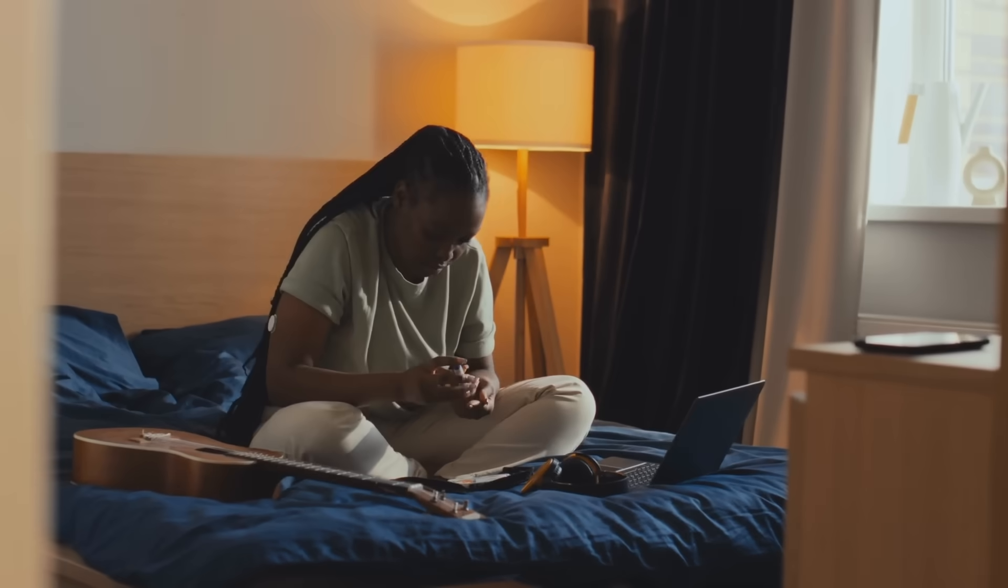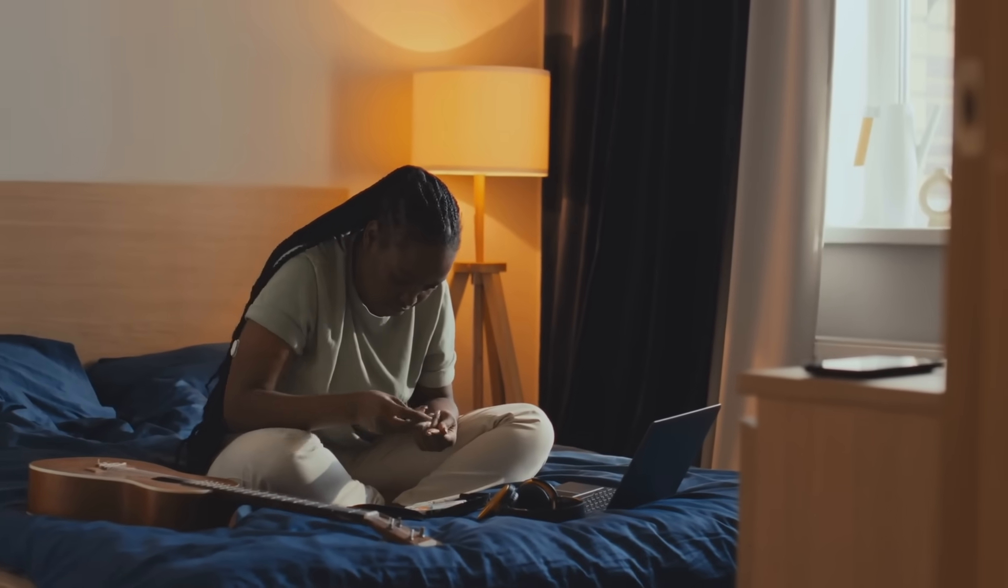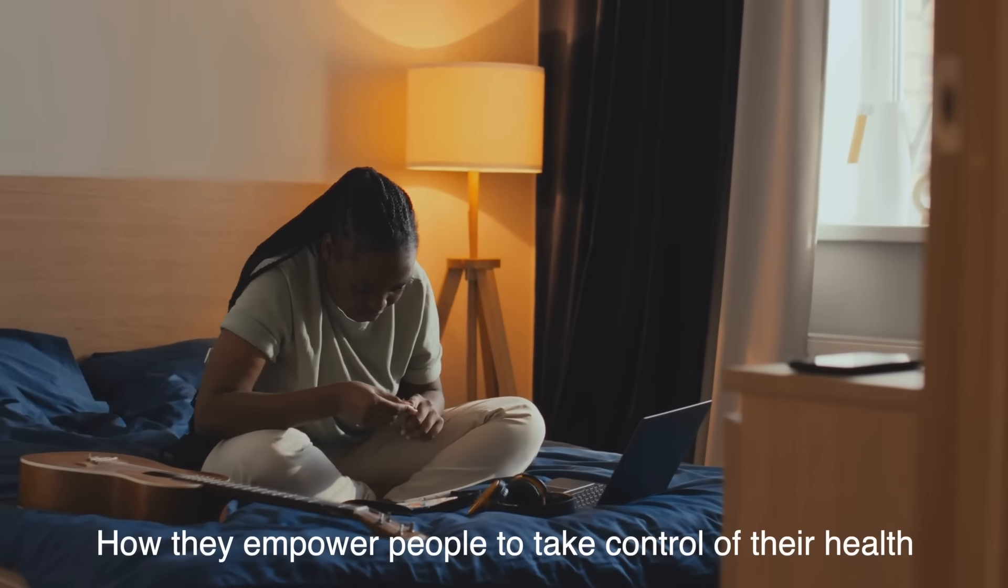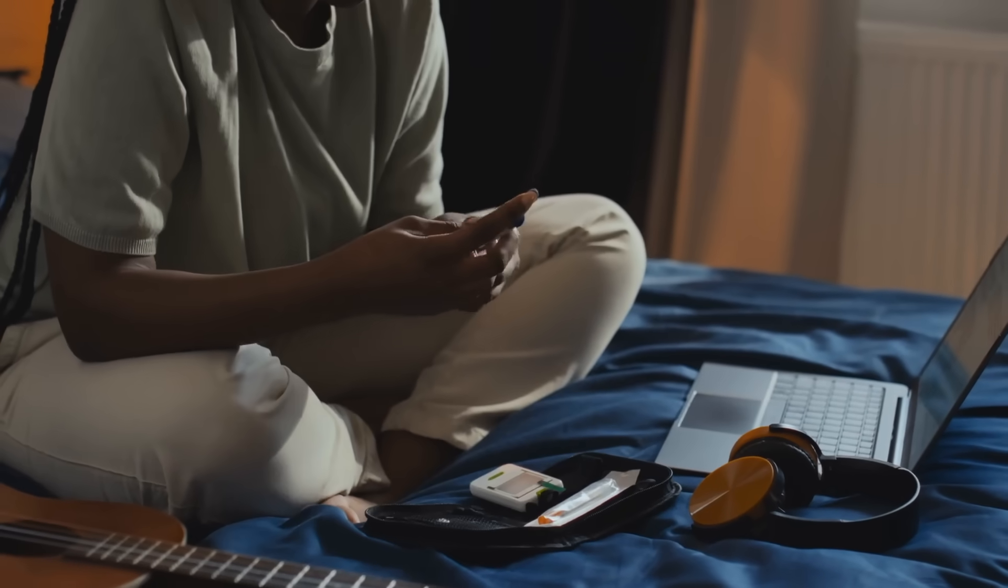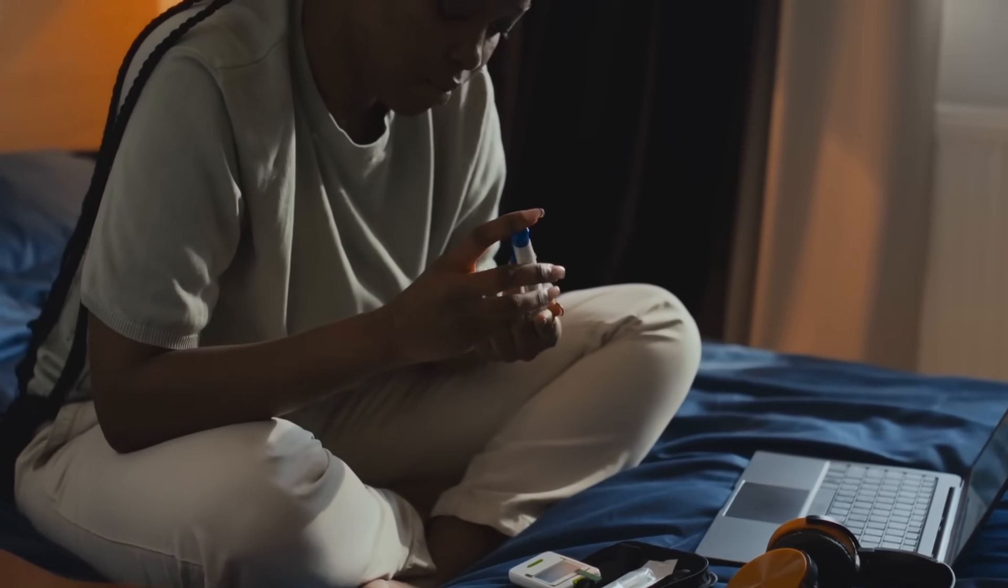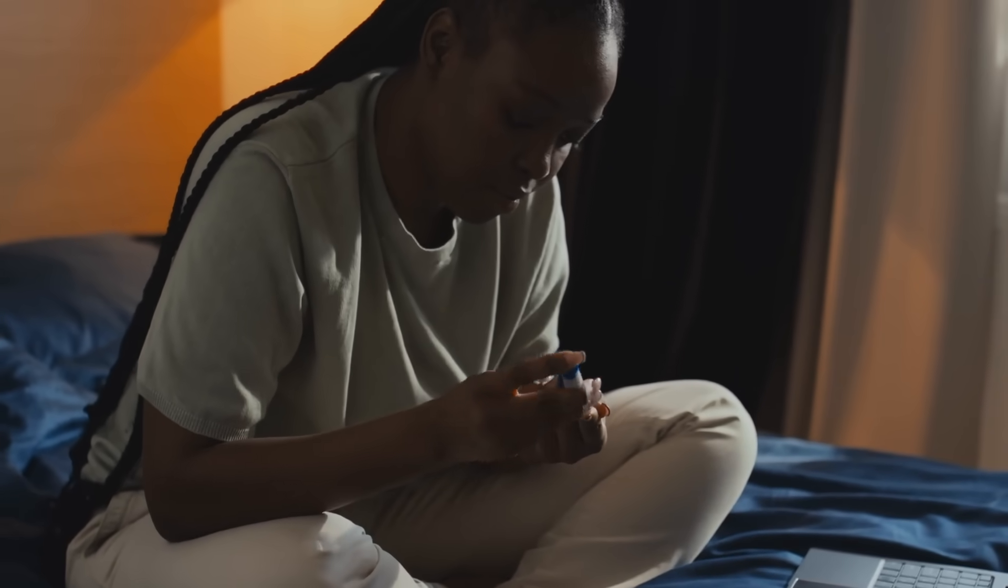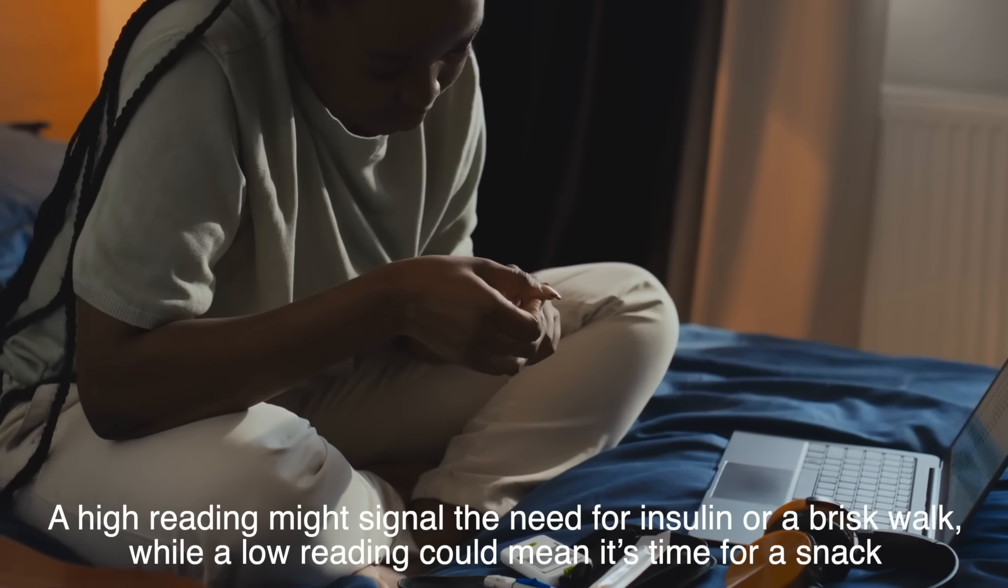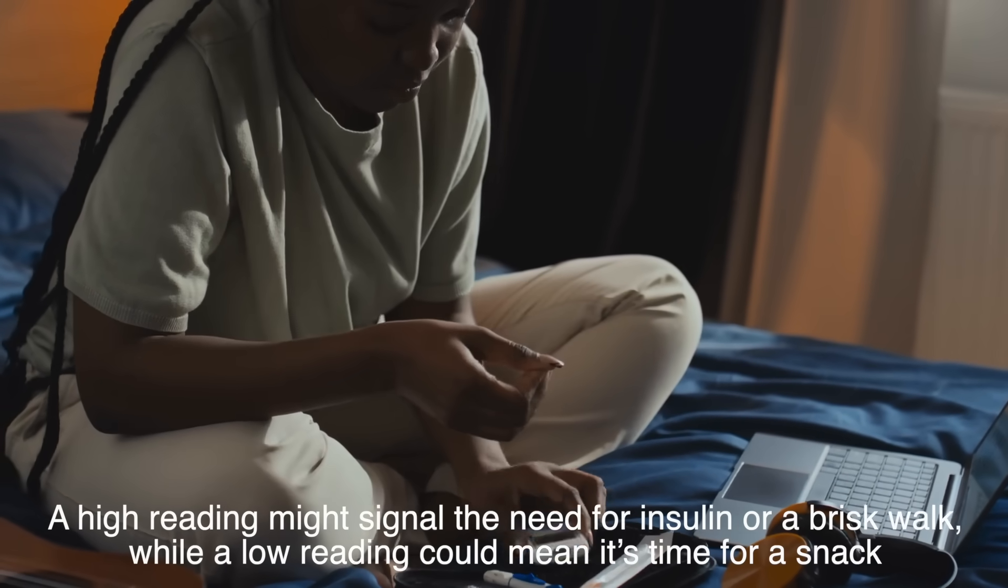One of the most impressive aspects of glucose meters is how they empower people to take control of their health. For those with diabetes, these devices aren't just about numbers, they're about making informed choices. A high reading might signal the need for insulin or a brisk walk, while a low reading could mean it's time for a snack.